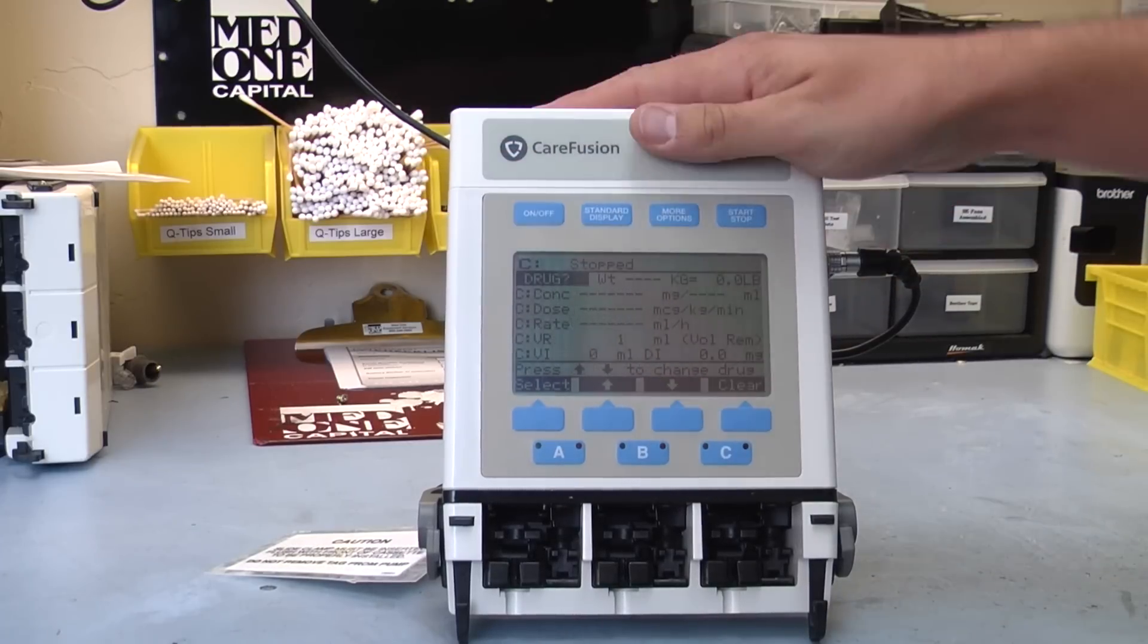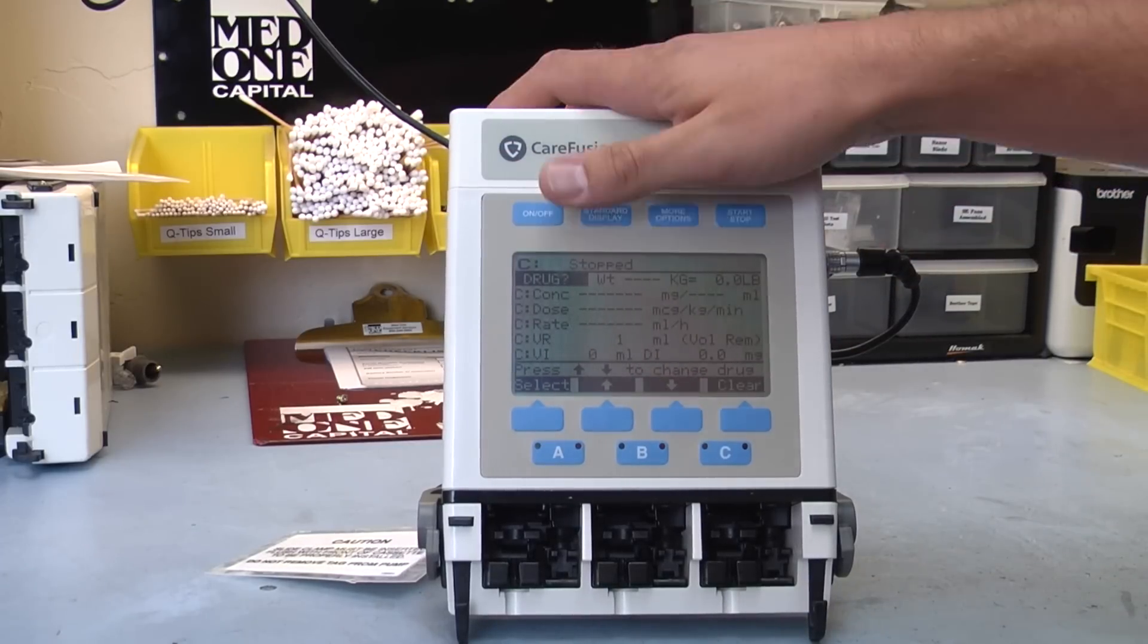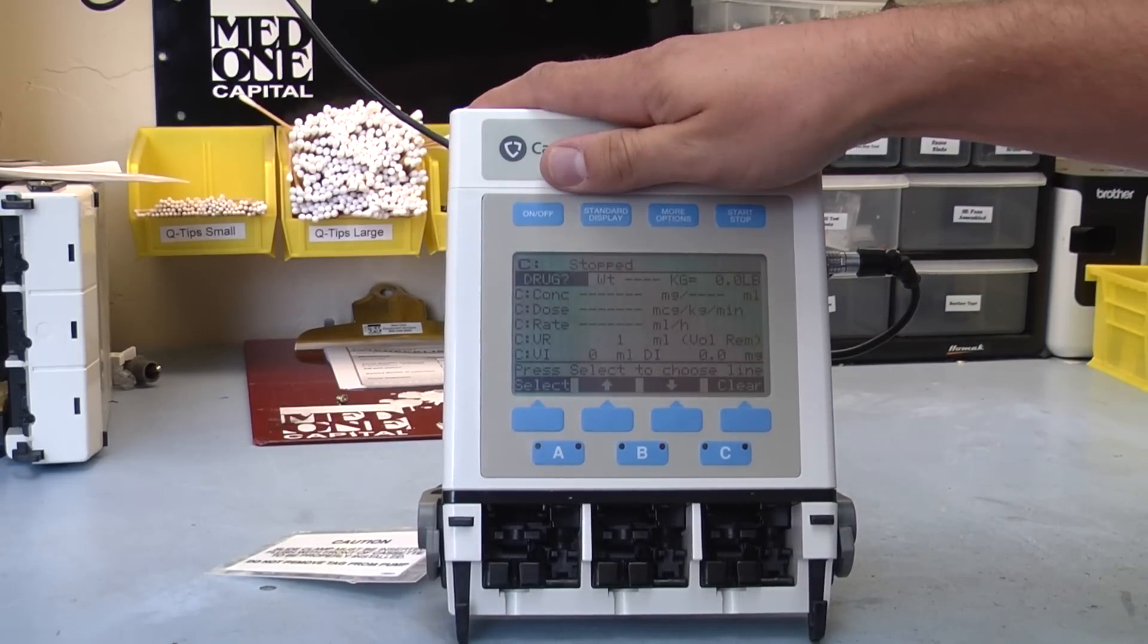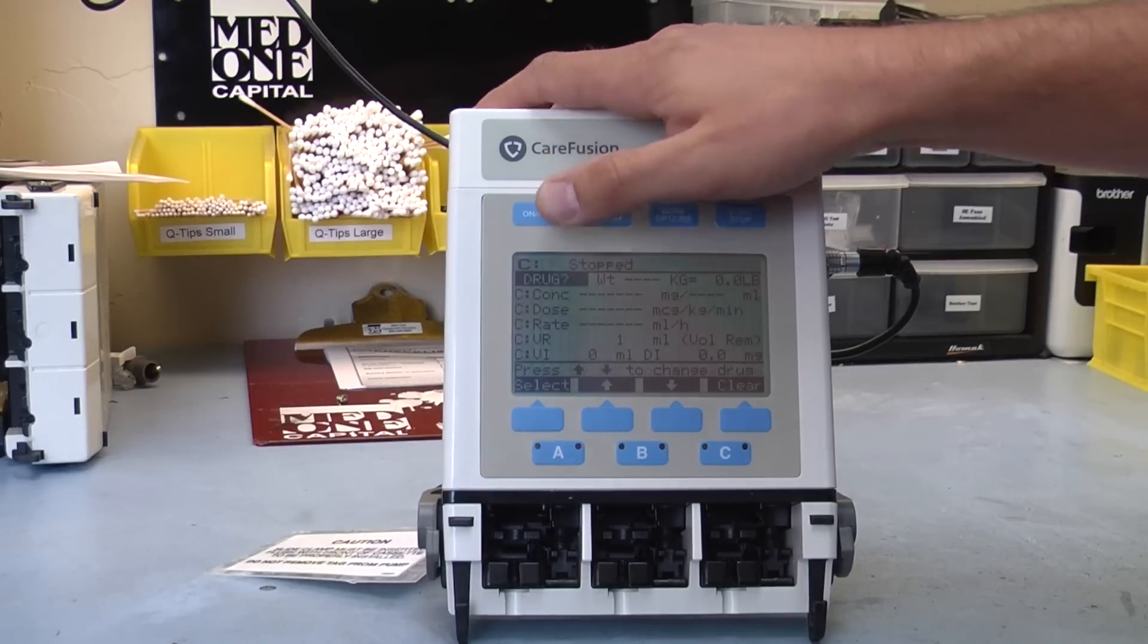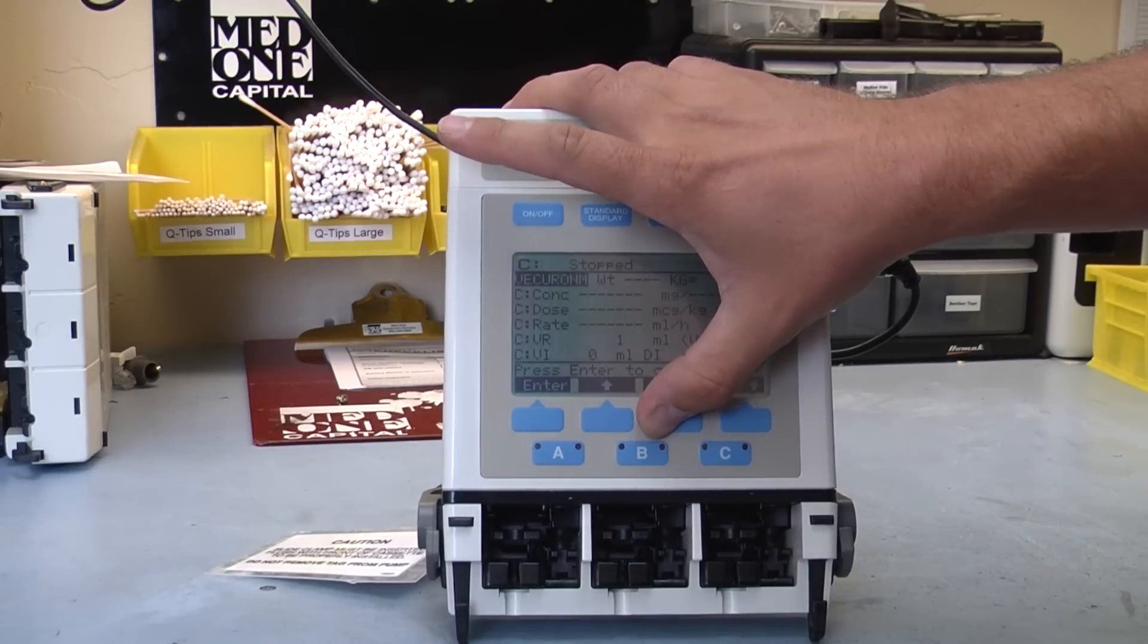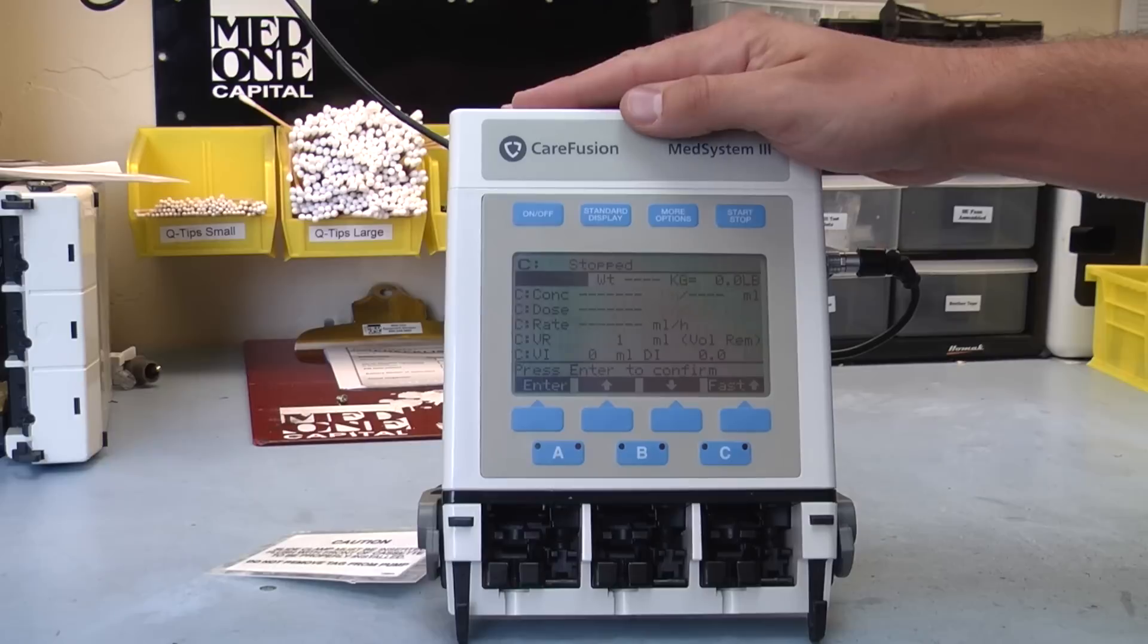Navigating through the menus to get to those drugs and the rates are super easy. Introducing a drug into the patient is very easy. You can just go to here and select your drug that's necessary for the patient.